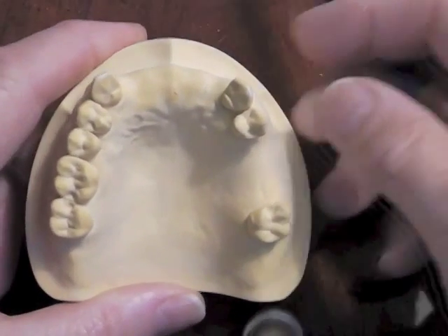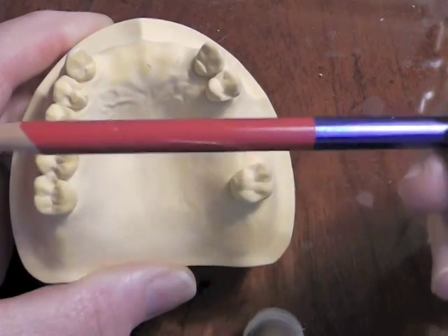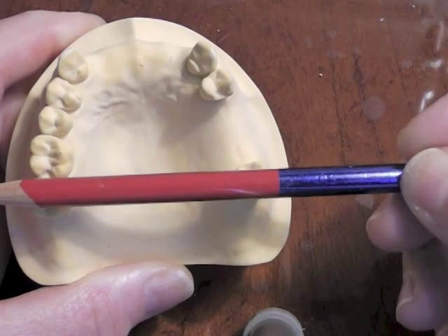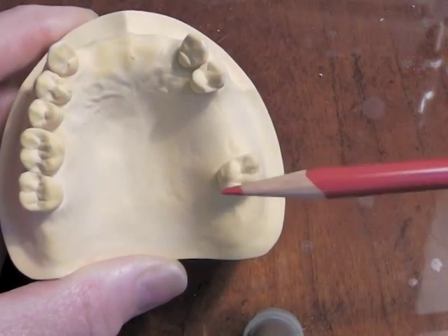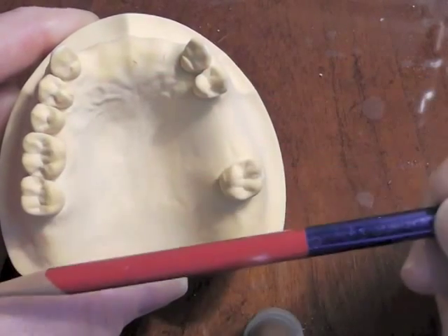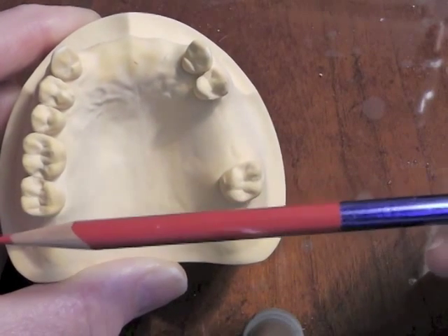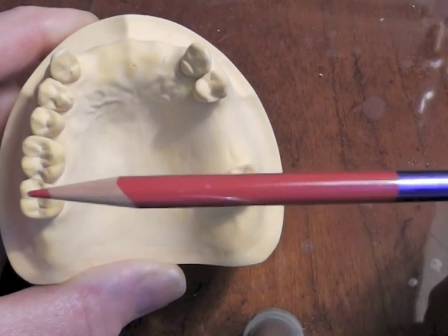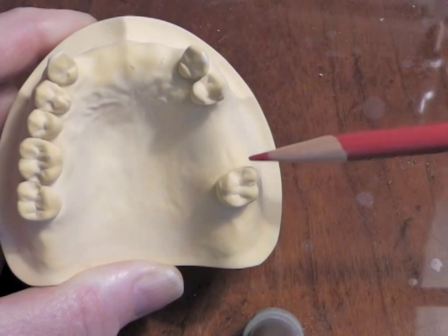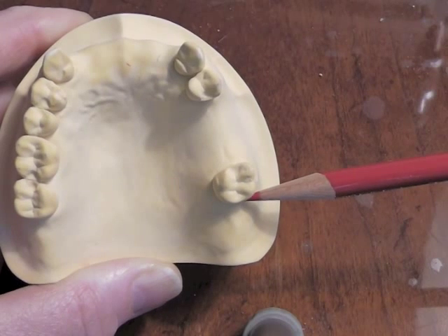When the patient bites down, we have another fulcrum line where that partial might want to flip up in the back. Consequently, if we can place a clasp assembly far away from that edentulous area up front, we would prevent those movements from taking place. In the Kennedy Class III, we tend to put a direct retainer next to the tooth adjacent to our edentulous areas.